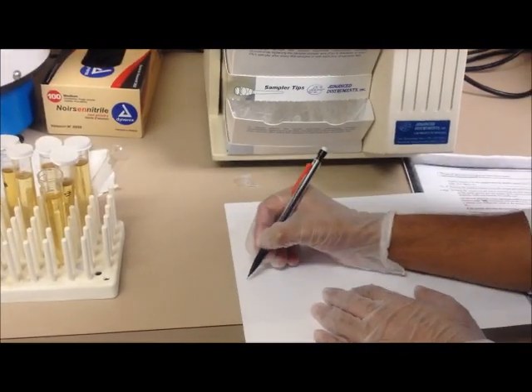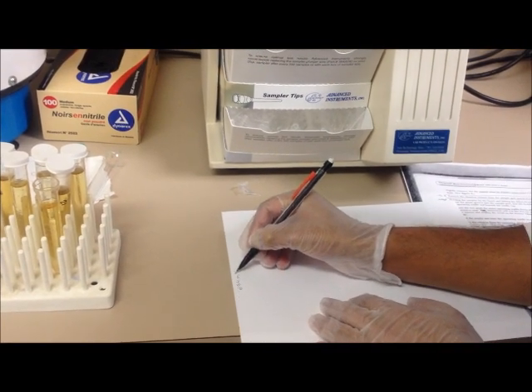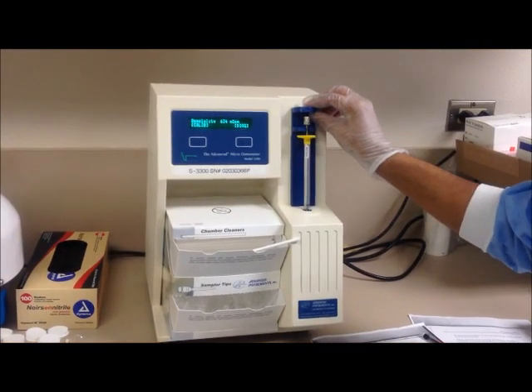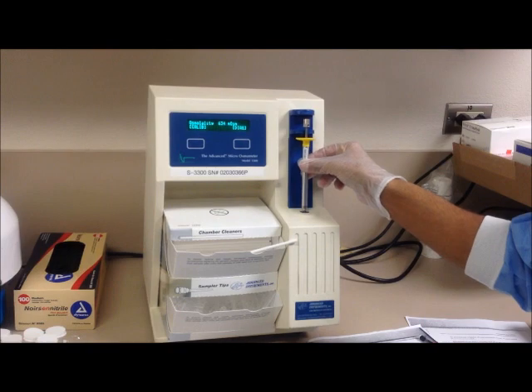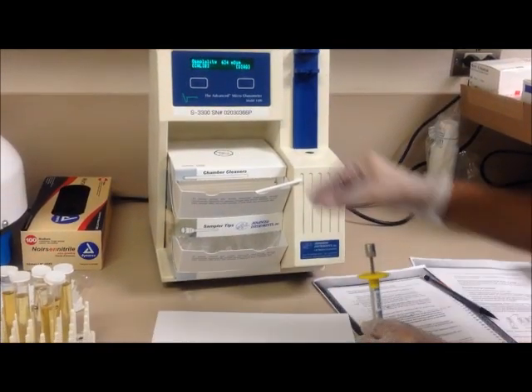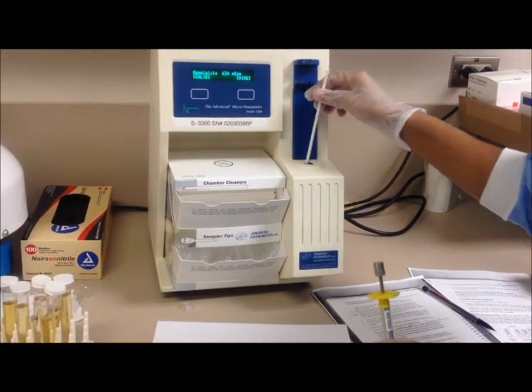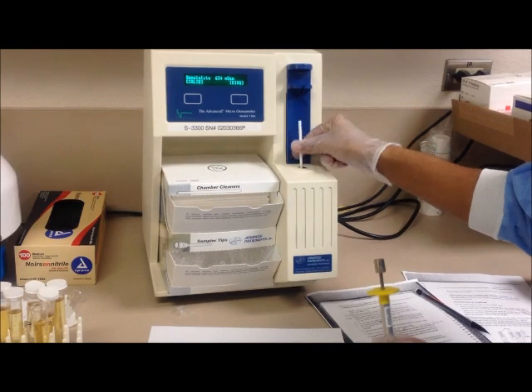Now, record your result. Remove the sample from the operating cradle. Insert a dry chamber cleaner into the sample port to clean it.